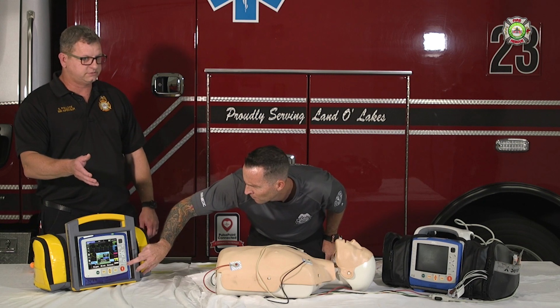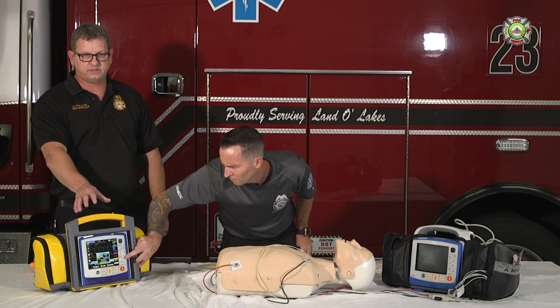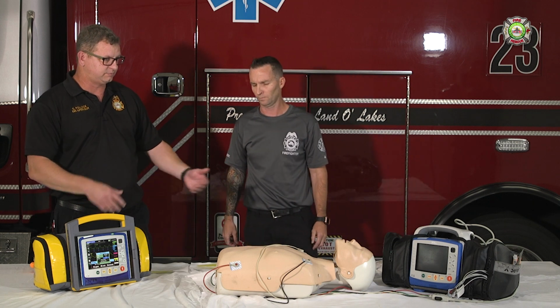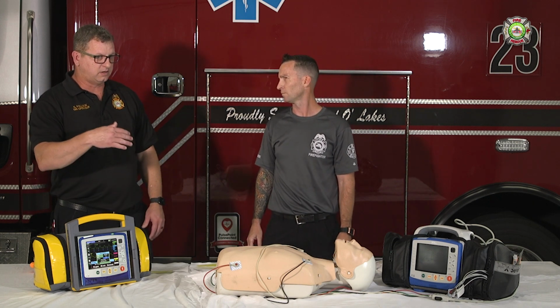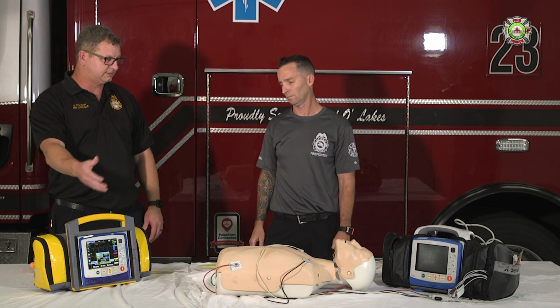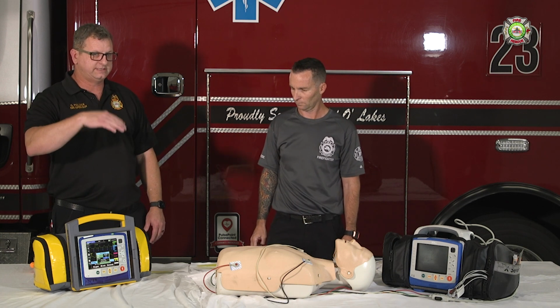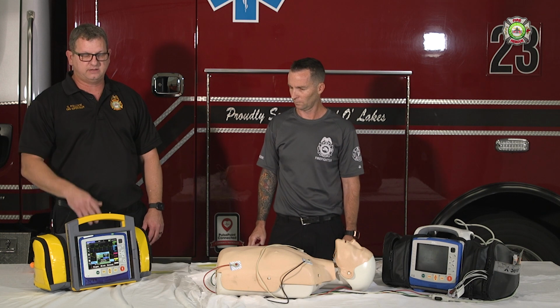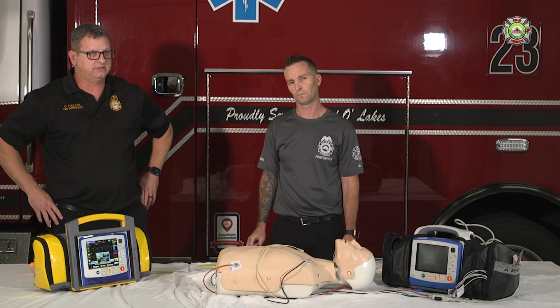And on our monitors, this is obviously the simulator, so it operates 99% just like our monitor, but there is one thing, ours, like you said, preset of 30, but in our monitor, if you get capture, let's say it's 70 milliamps, you want to go back down in increments of 5 to 65, and if you maintain capture at that level, just keep it at that level.